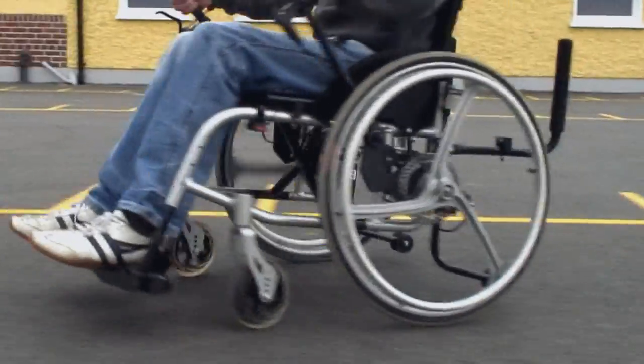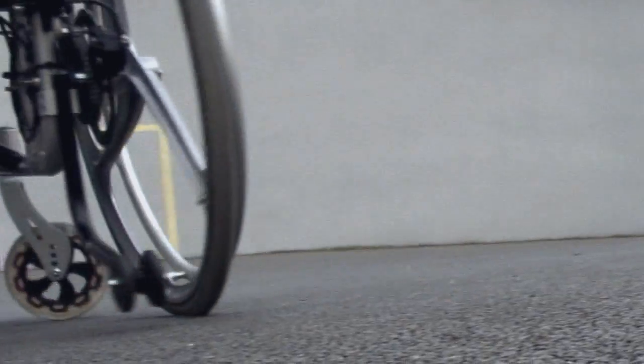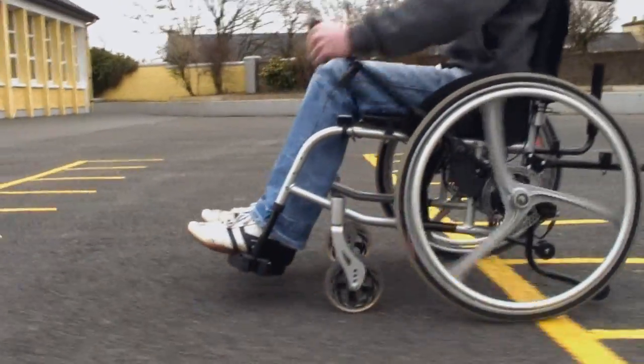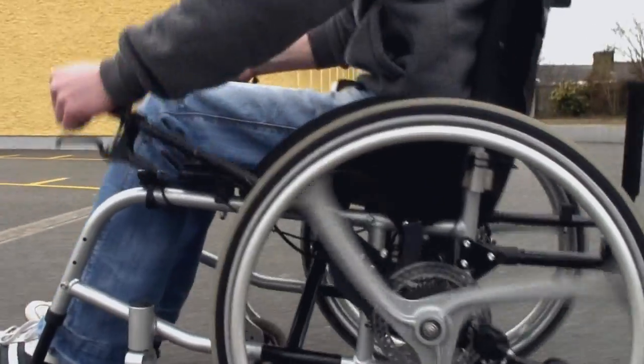The Nordigo adds range to the wheelchair user. Simply by utilizing the power of a different set of stronger muscles, the Nordigo can help achieve a greater distance. The user will not be wasting vast amounts of energy trying to overwork small muscles not designed for heavy work. Nordigo users will be able to go further and get proper cardiovascular exercise when using the Nordigo wheelchair.